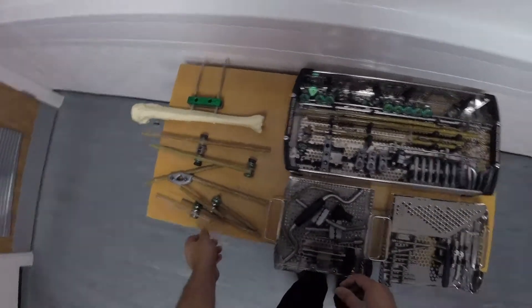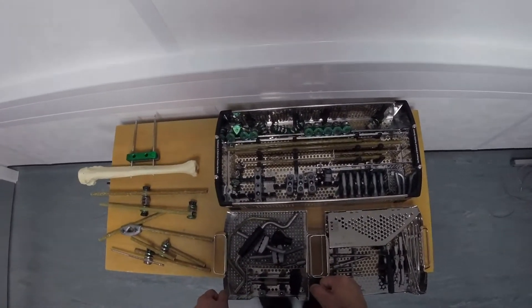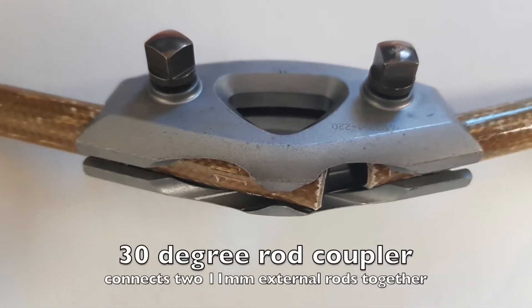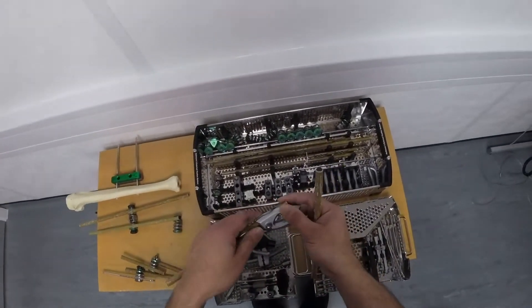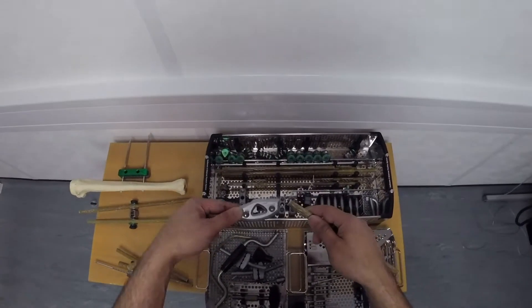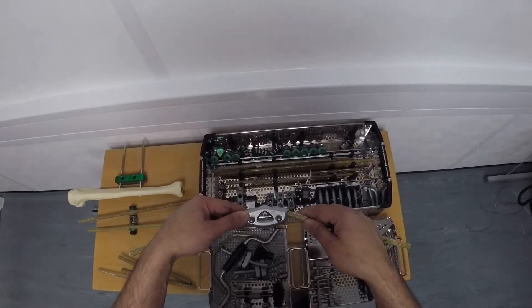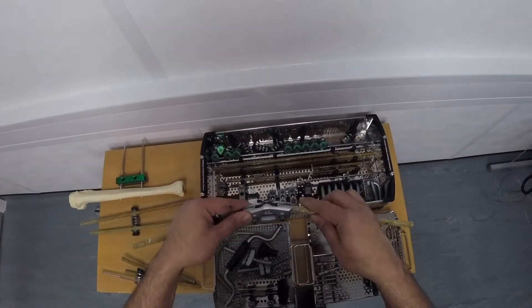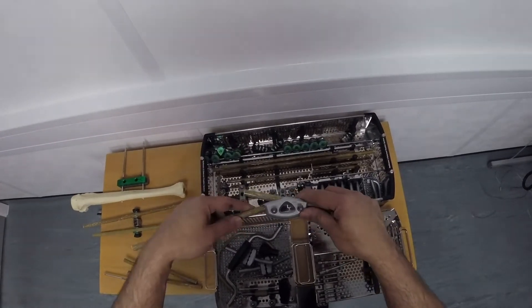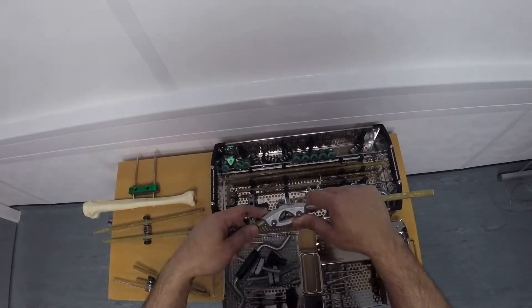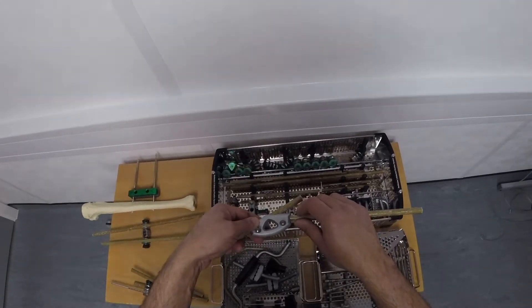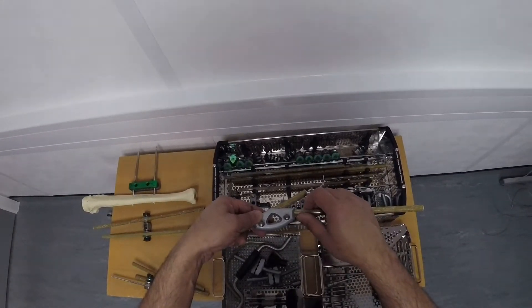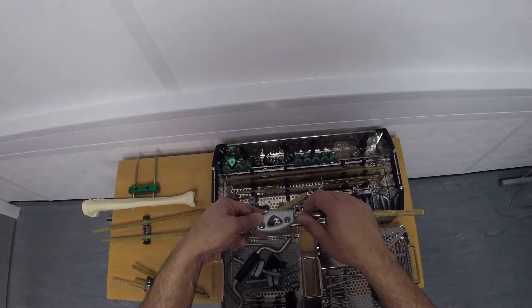What other devices do we have for gripping the external rods? Well, there's this type as well. With this type, you can grip two 11mm external rods. You might be able to use this on the pelvis or on a knee spanning fixator. What you can do is slide in one side and slide at the other side. It just means that you can conform to the anatomy a little bit better. You can go the other way. And by tightening up these nuts, it means that you can grip these very strongly and that will hold your pelvic external fixation together at the front.